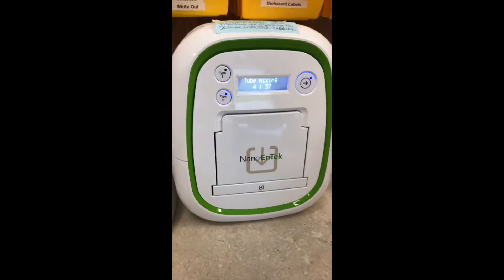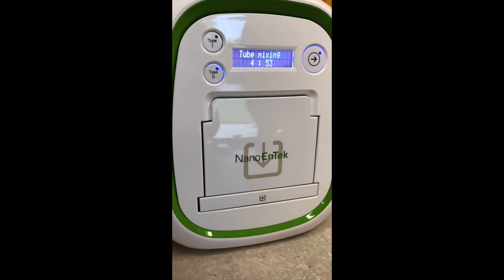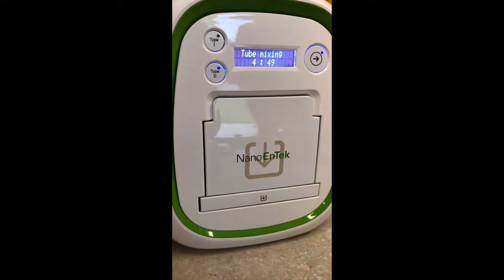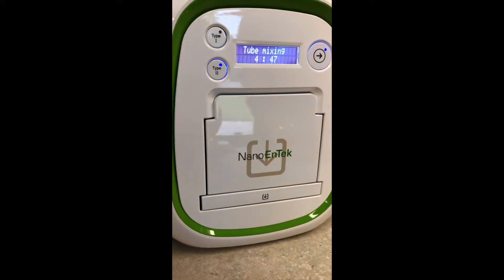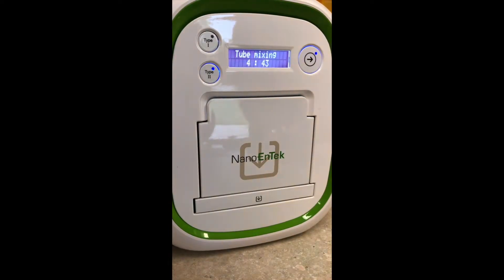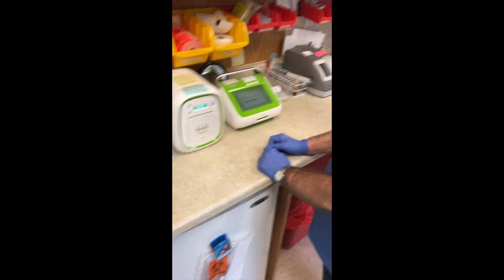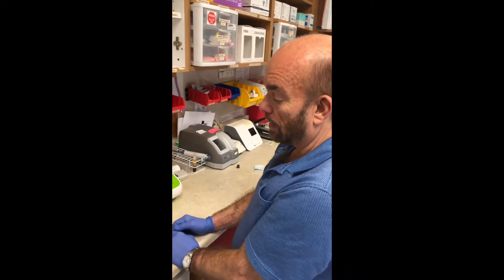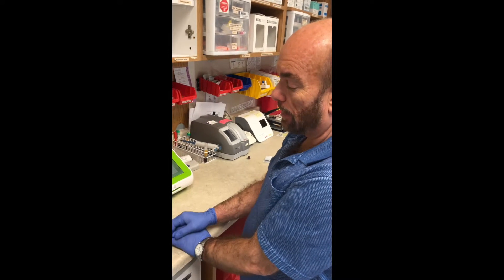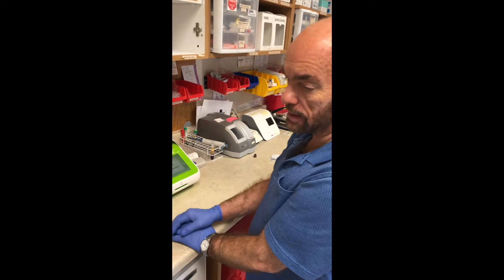This will count down — the whole sequence is about 10 or 12 minutes. It will mix the tube, mix the serum, and then drop it onto the cassette, and then it will incubate. Once it's done, it'll beep at you, and then you'll come and take care of the cassette.